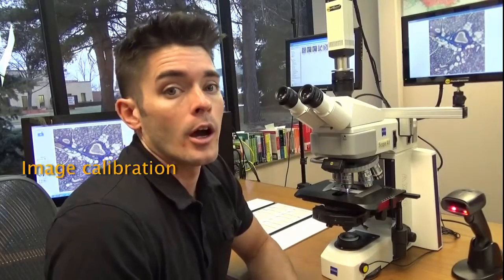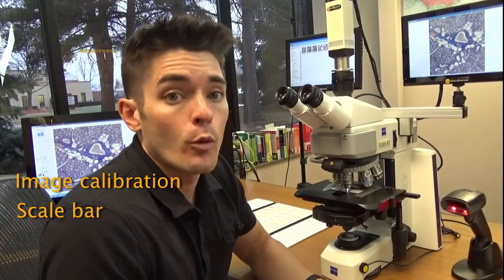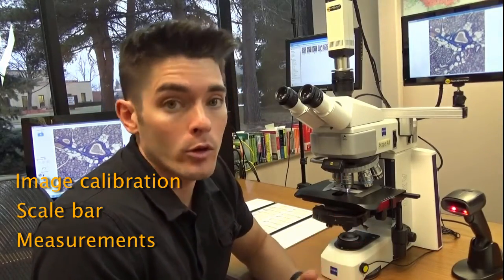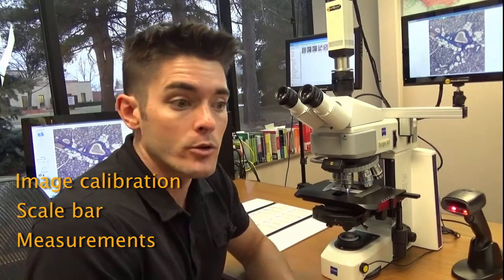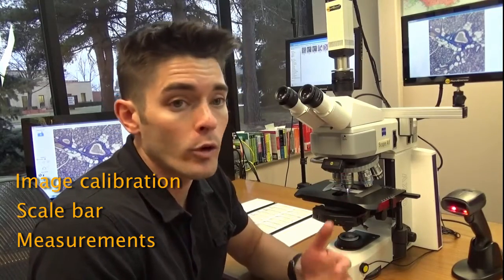Lastly, by knowing what objective is in use, we can apply correct image calibration so you can add your scale bar and measurement to the image without having to manually select what magnification is in use, or even worse, forgetting to do so.